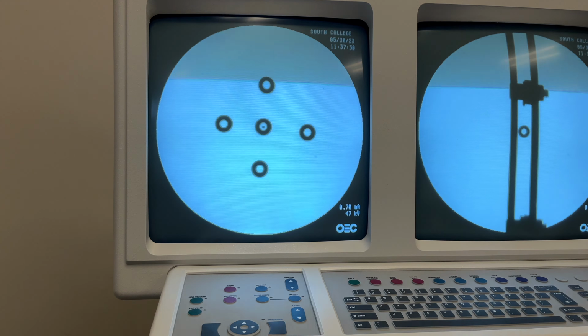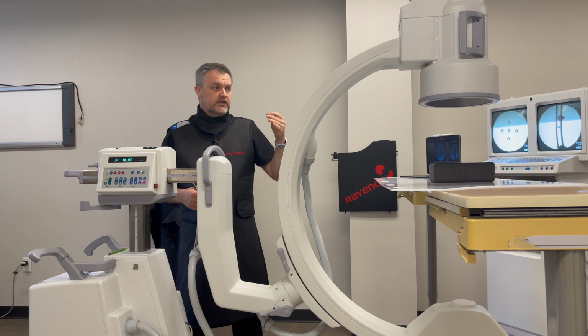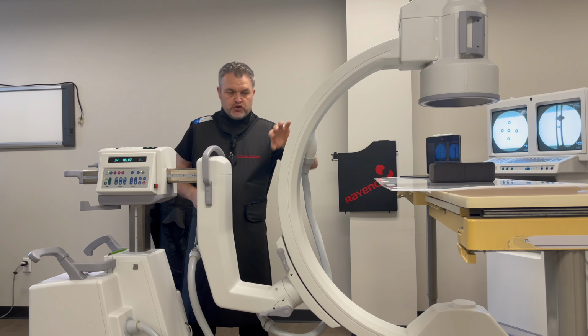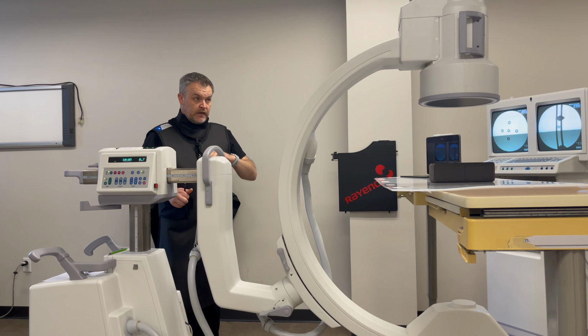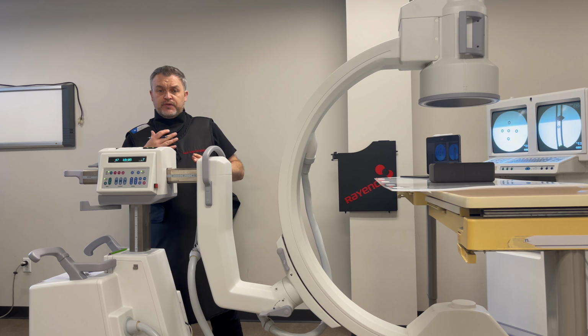To make sure that I can maintain that each time, with a pencil, I will go ahead and mark my boom arm. That gives me my in and out. And then I also place a pencil mark on the C component. Now, if you're doing orthopedic cases, this part of the C-arm is usually exposed because the blue orthopedic sterile drape is on the front, so you can get full access to marking up the C. So that would be my AP.